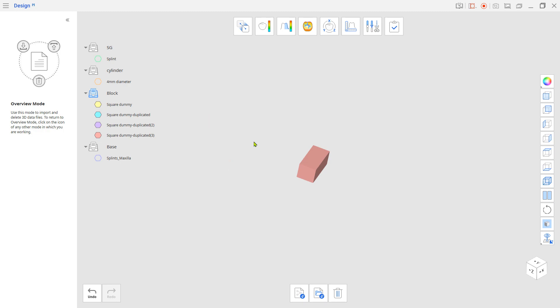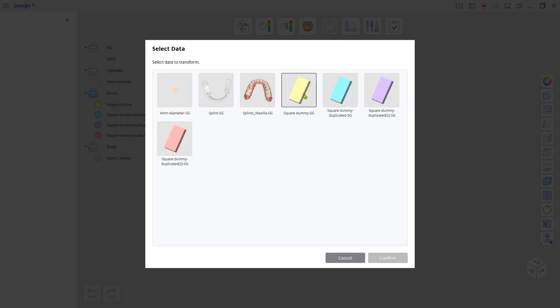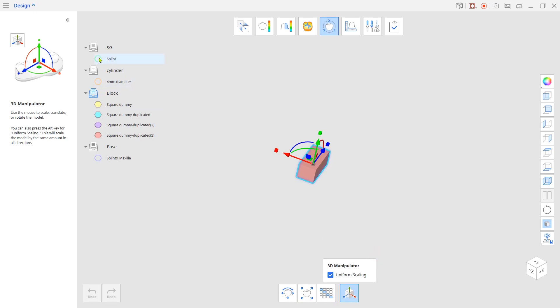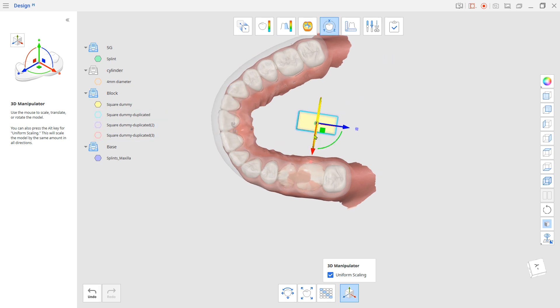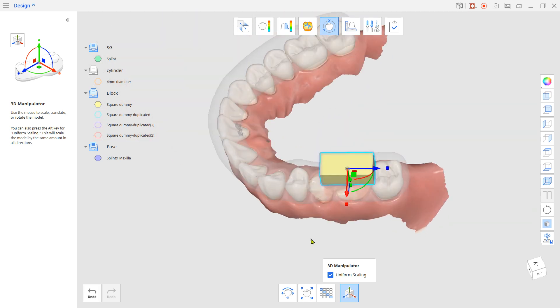Go to Transformation Mode and locate the Block STLs to make a window, a drilling stop, and an even bar.